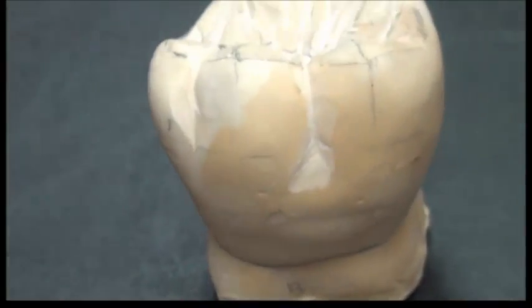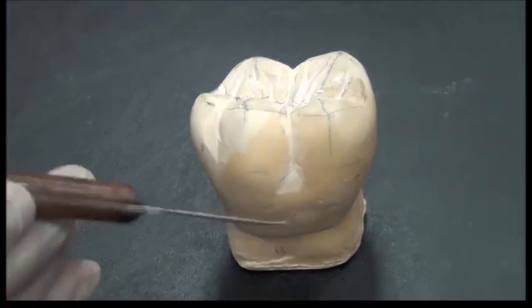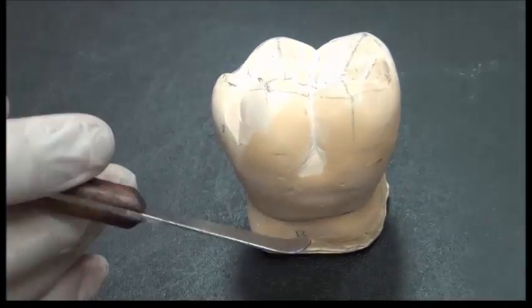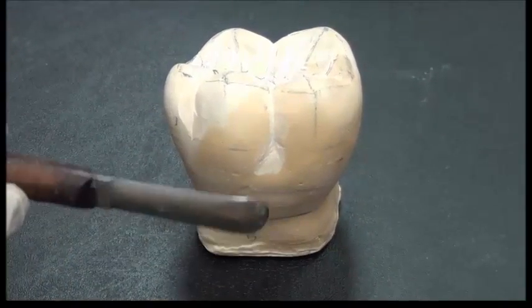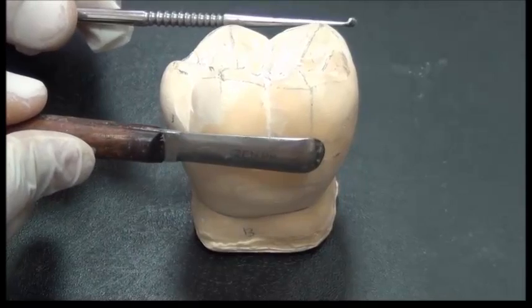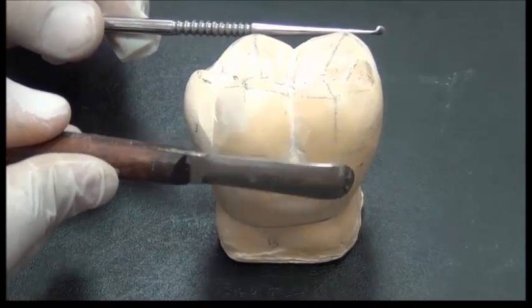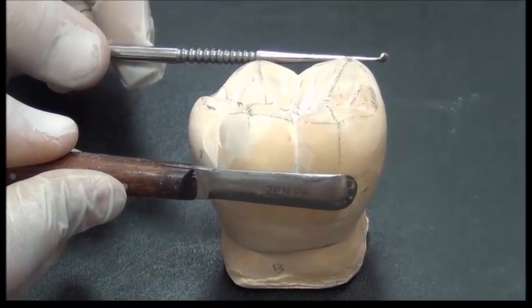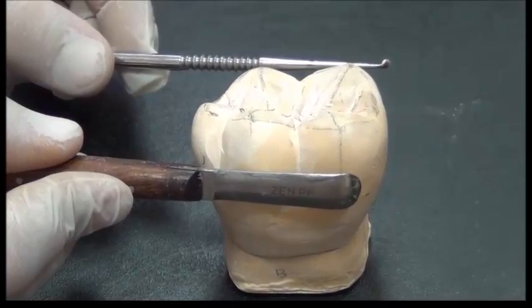So let's take a closer look on this tooth. I want to end my clasp in a way where I could hold this RPD in place. I will take this instrument, the instrument as a clasp. Suppose the patient is going to bite on sticky food. He loves chewing gum, for example, or a piece of sweet, and he's using this RPD, the removable partial denture.